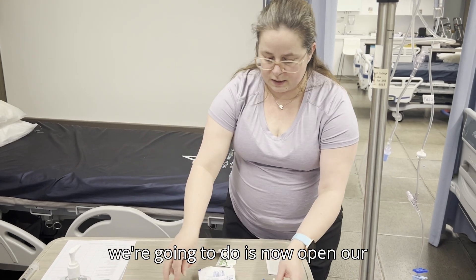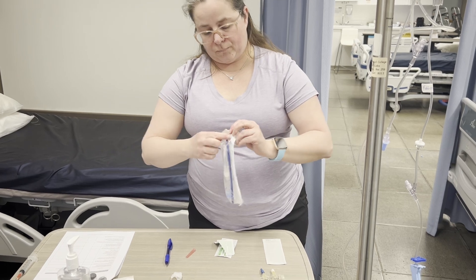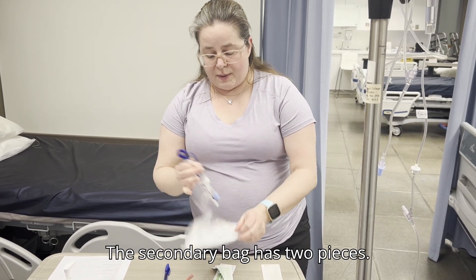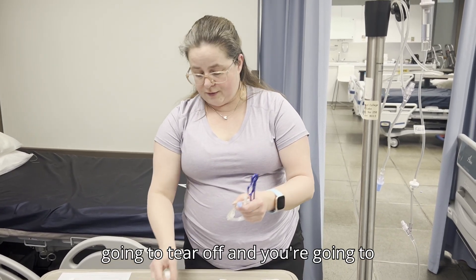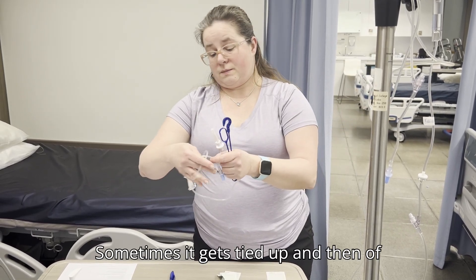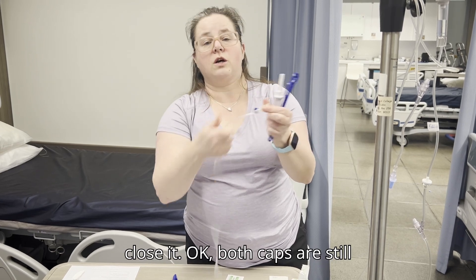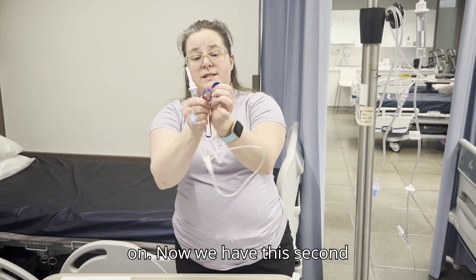The next thing we're going to do is open our secondary IV set. The secondary set has two pieces — there is a paper tab to tear off, then you untangle the line. Sometimes it gets tied up. Then push your roller clamp all the way to the top to close it. Both caps are still on at this point.